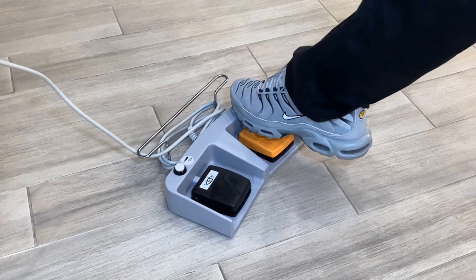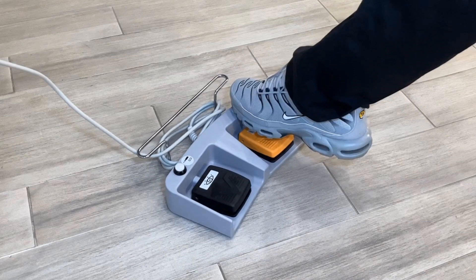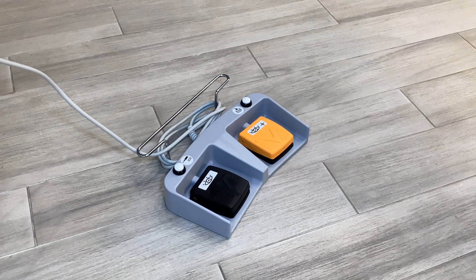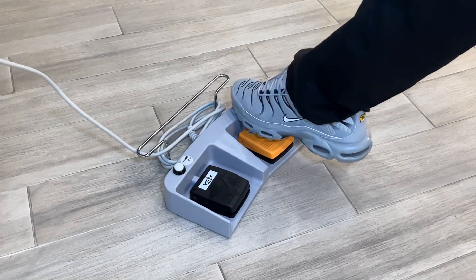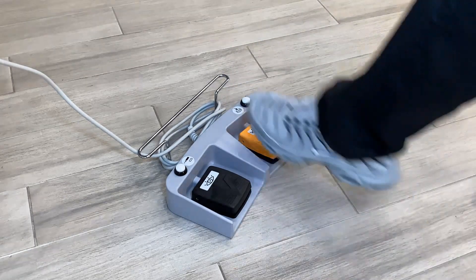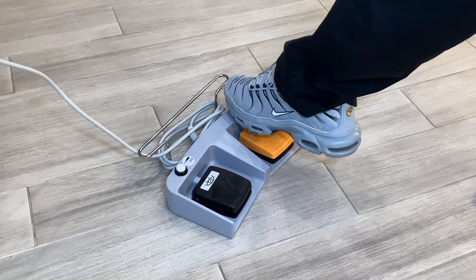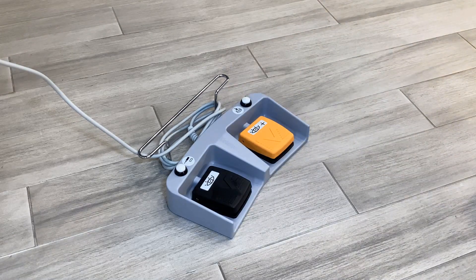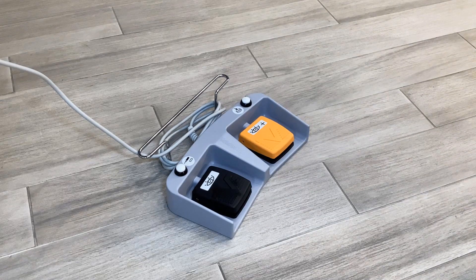Press the save button to save the image on the left area of the monitor and Cine. A short step on the save button will save the image. A long step on the save button will save the Cine run, known as Cine save or fluoro store.